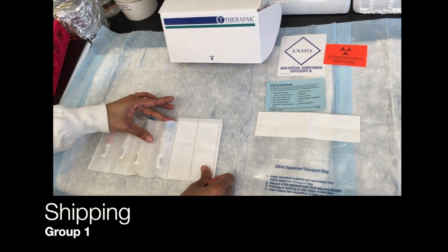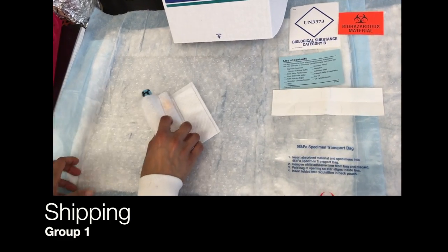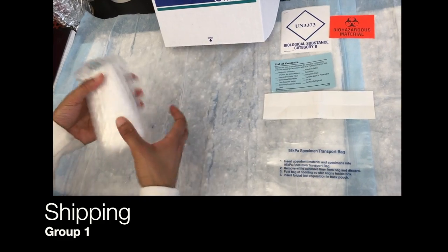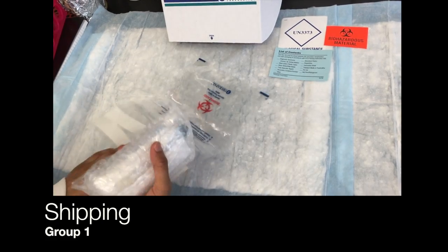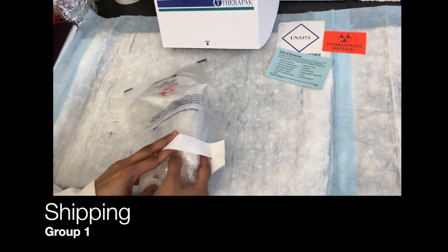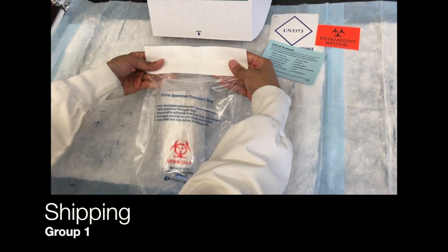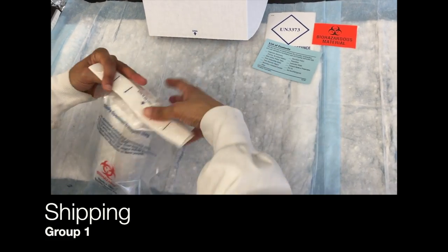To ship blood samples, place all labeled blood tubes in the tube holder material provided. Wrap them securely in bubble wrap. Place the wrapped samples in the plastic sealable bag provided. Peel off the protective paper and fold to seal the bag such that the star is inside of the square box.